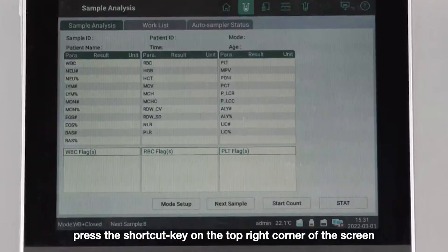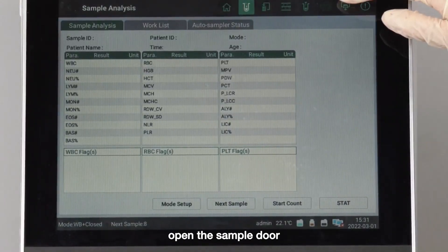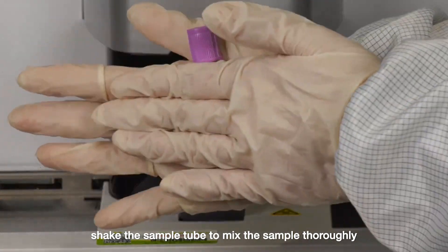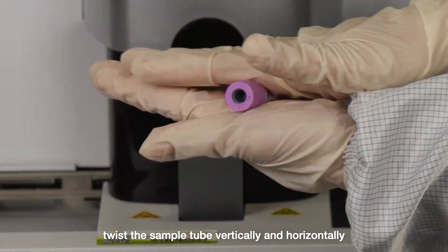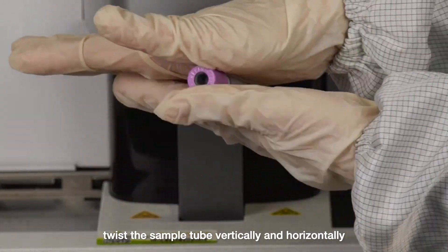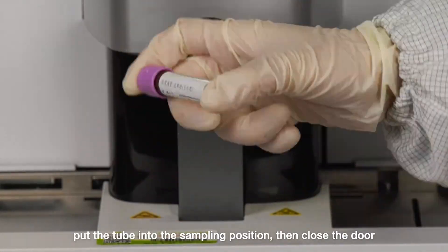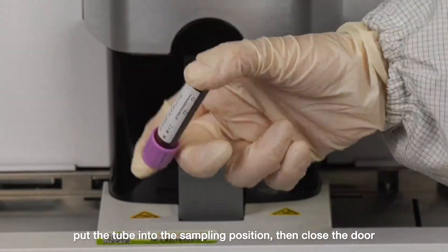Press the shortcut key in the top right corner of the screen and open the sample door. Shake the sample tube to mix the sample thoroughly. Twist the sample tube vertically and horizontally, then rotate the tube up and down 10 times. Put the tube into the sampling position, then close the door.